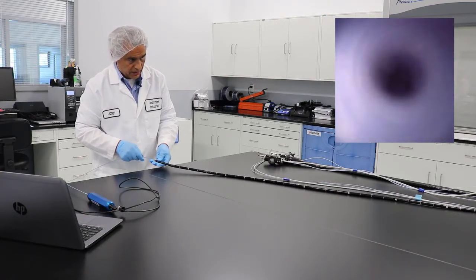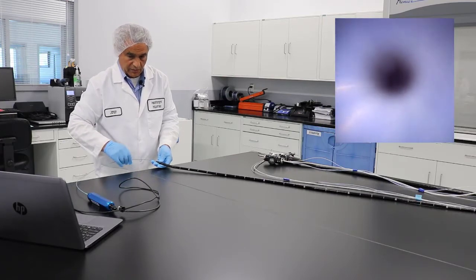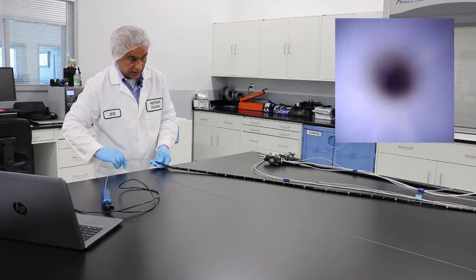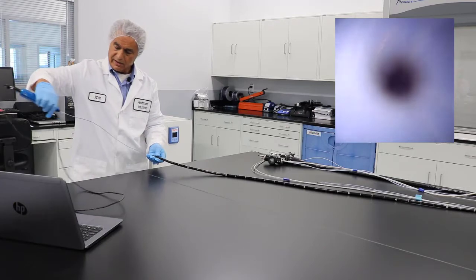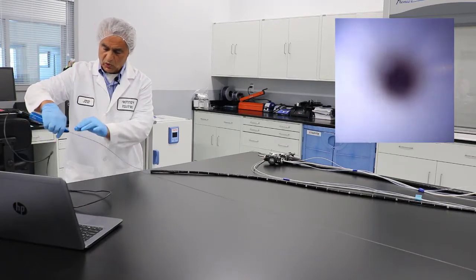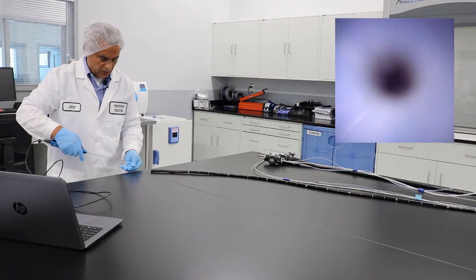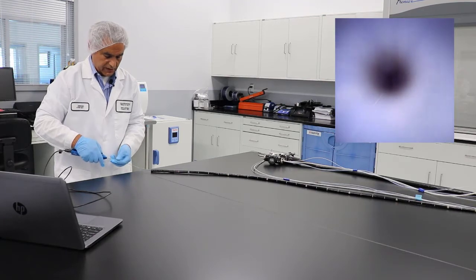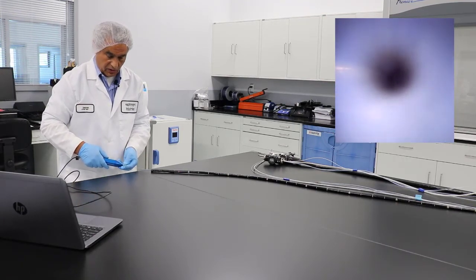This scope is about 110 centimeters, so by going from the distal end and the proximal end you should be able to cover the whole thing. Again, make sure that this is not bending because you will damage it. From this end you can hold it if you're comfortable and slowly push it forward — don't bend any of these; they are fiber optic and they get damaged. Go in really slowly.